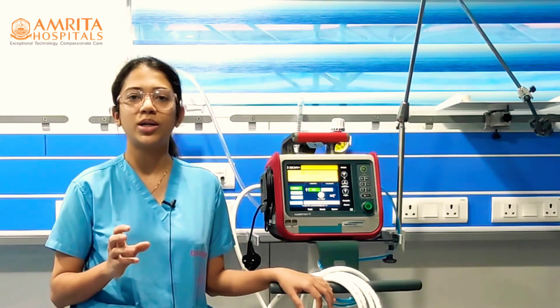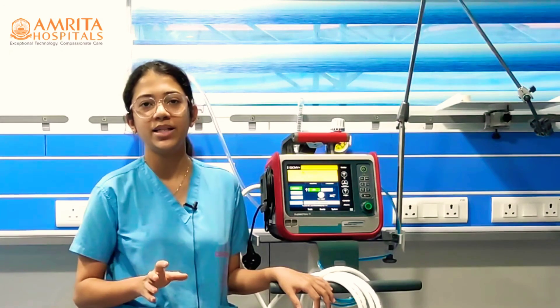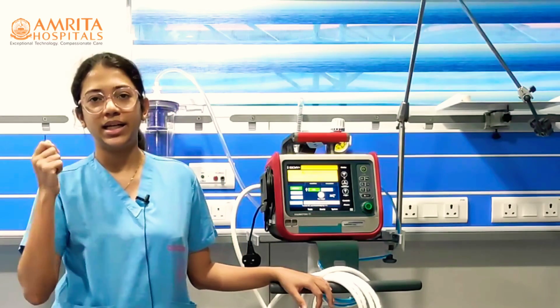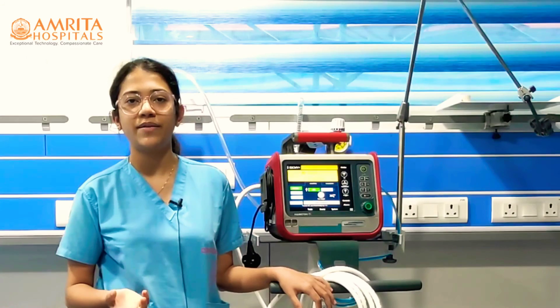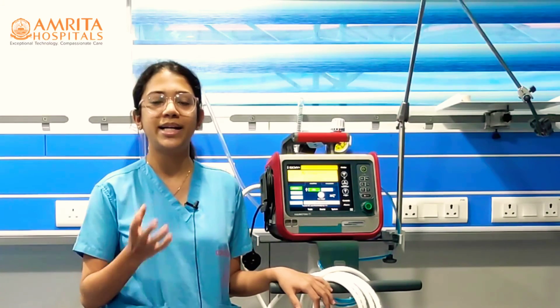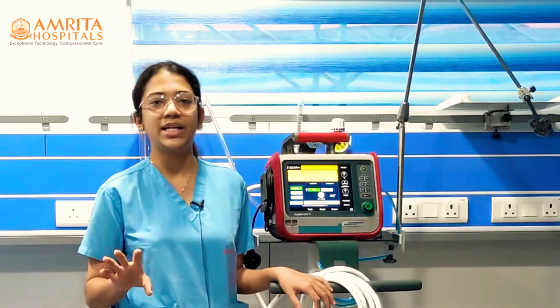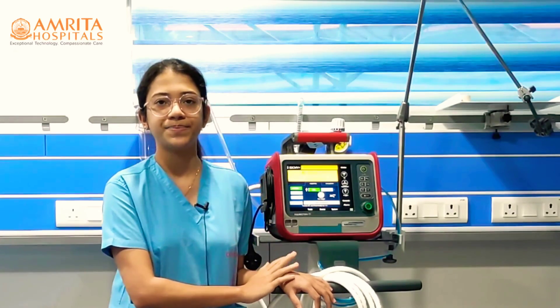To summarize: tidal volume is calculated based on ideal body weight. We measure the patient's height in centimeters, calculate the ideal body weight, and then select the appropriate tidal volume. Approximately 8 ml per kg of ideal body weight is used as the standard tidal volume, which is then set on the ventilator. Thank you.